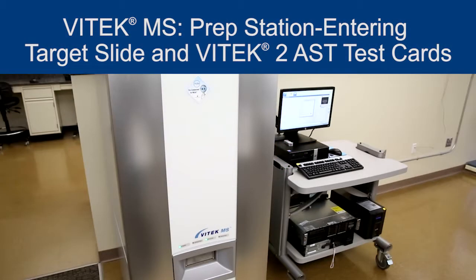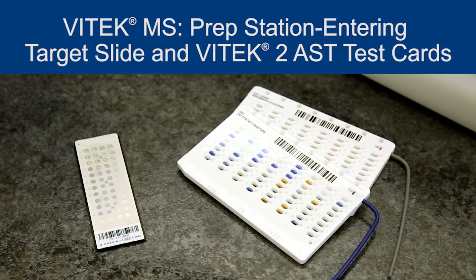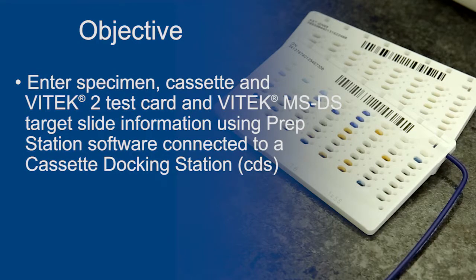The purpose of this video is to explain how to use the PrepStation software to concurrently enter information for VITEK MS DS target slides and antimicrobial susceptibility test cards for isolates to be tested on the VITEK MS and VITEK 2 instrument. Depending on your laboratory workflow, this information can be entered before card setup, concurrently with card setup, or after card setup. At the end of this video, you should be able to enter specimen, cassette, VITEK 2 test card, and VITEK MS DS target slide information using the PrepStation software connected to a cassette docking station.